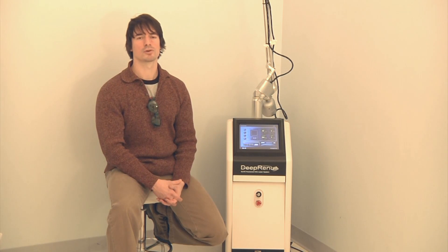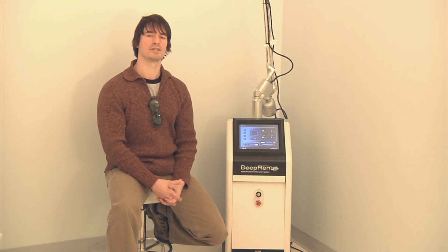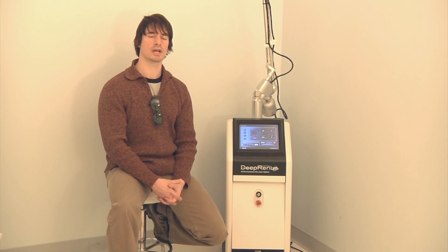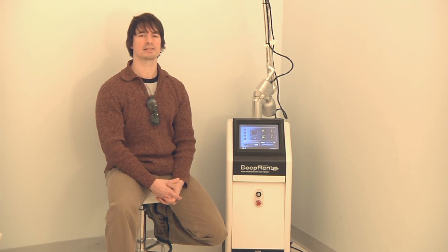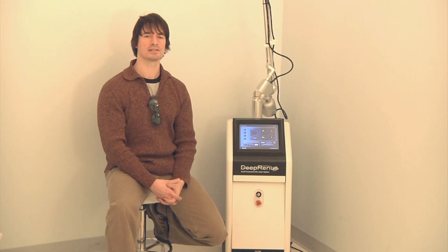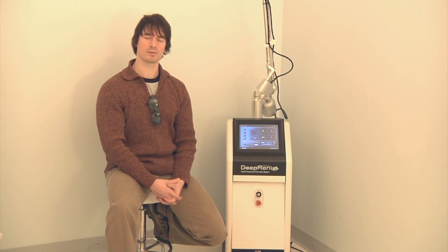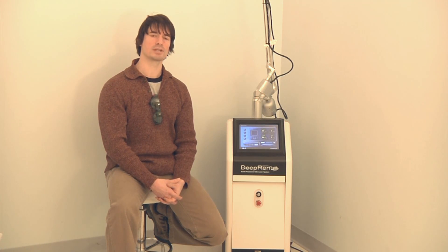These lasers all have what are known as optical resonator cavities, in which laser light is created. Most CO2 lasers on the market use glass optical resonator cavities. The downside of this is that the footprint is very large.